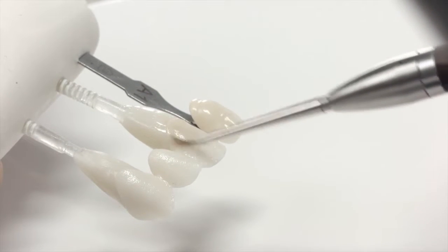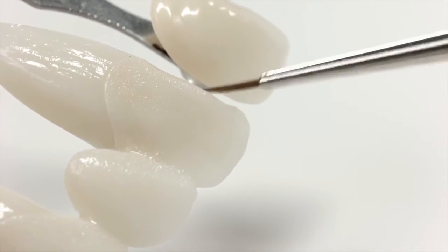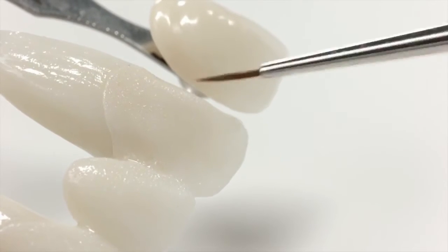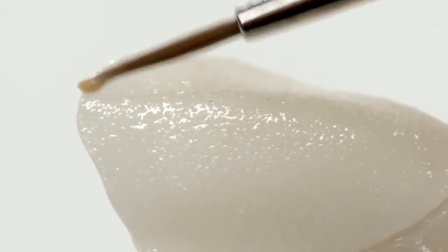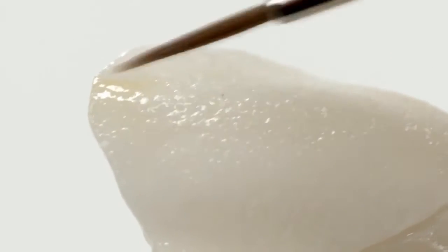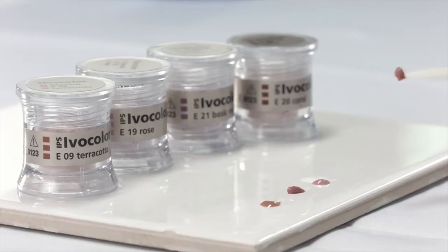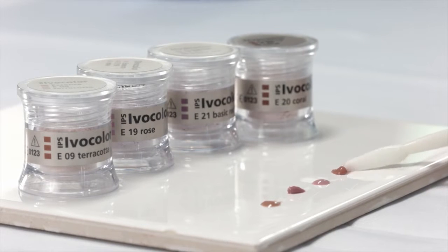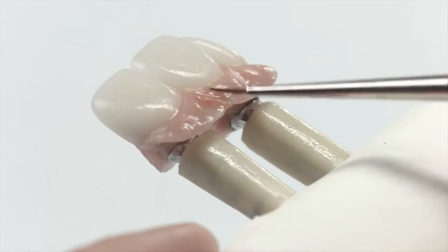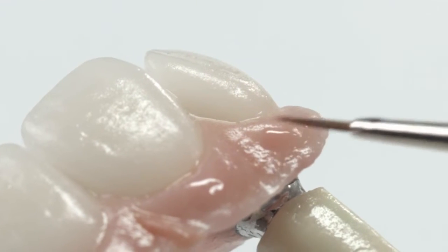Once fired, build up the enamel and transpa materials over the top of the cutback. Use the reddish shades to characterize the gingiva region. You can either stain the surface areas or mix the shades into the ceramic powder.